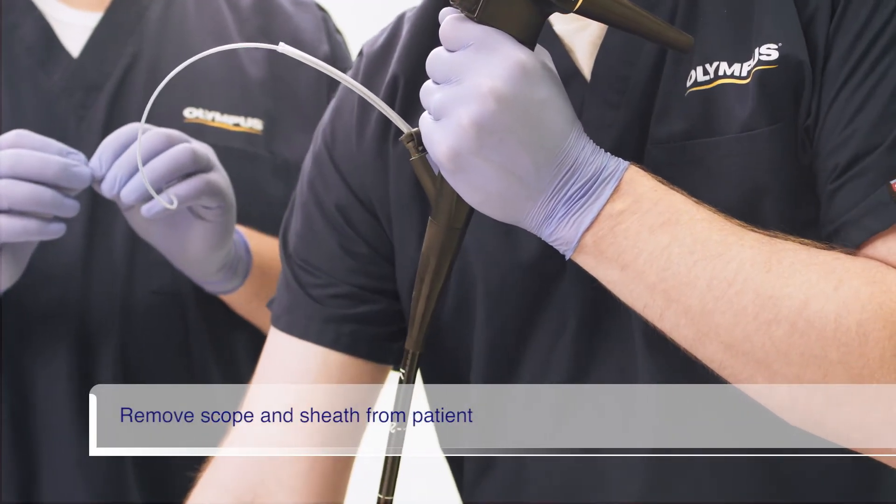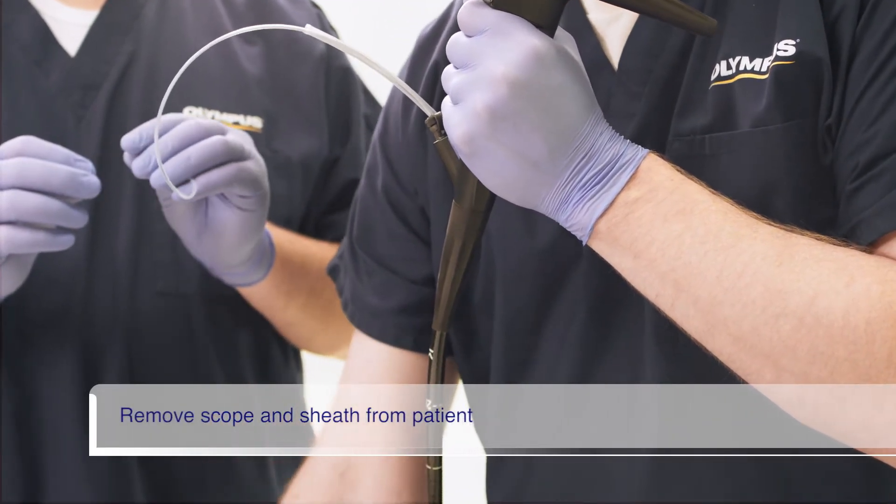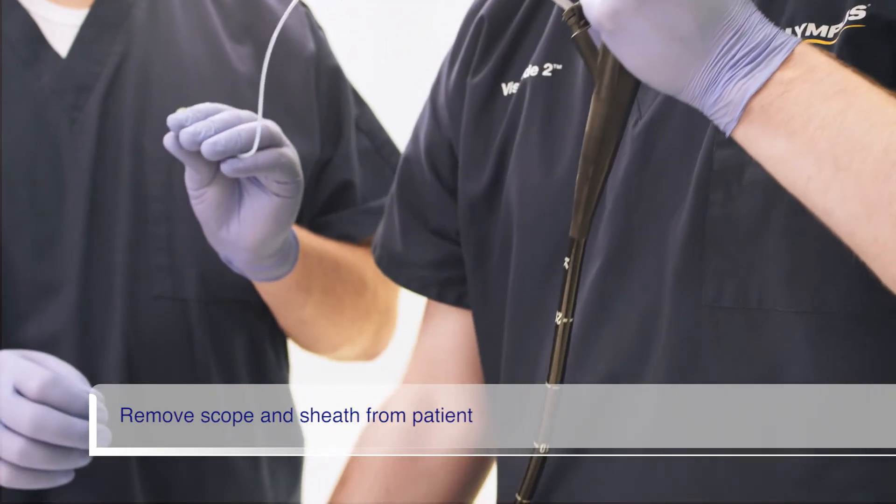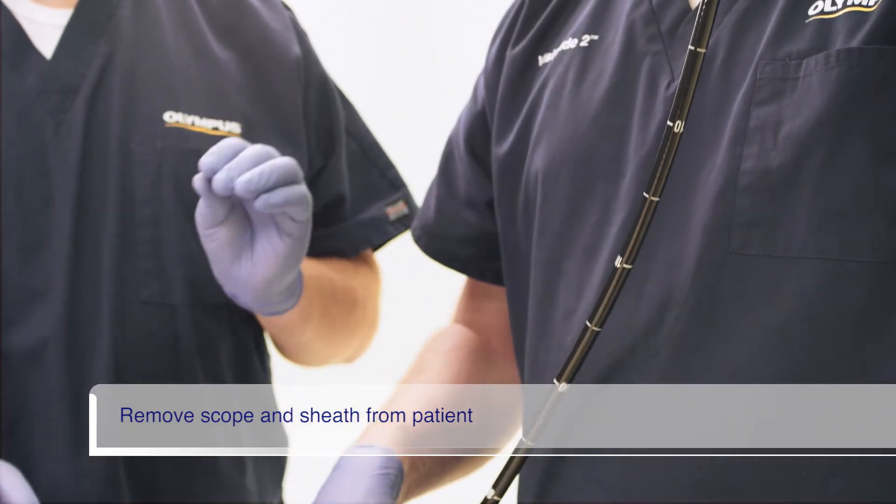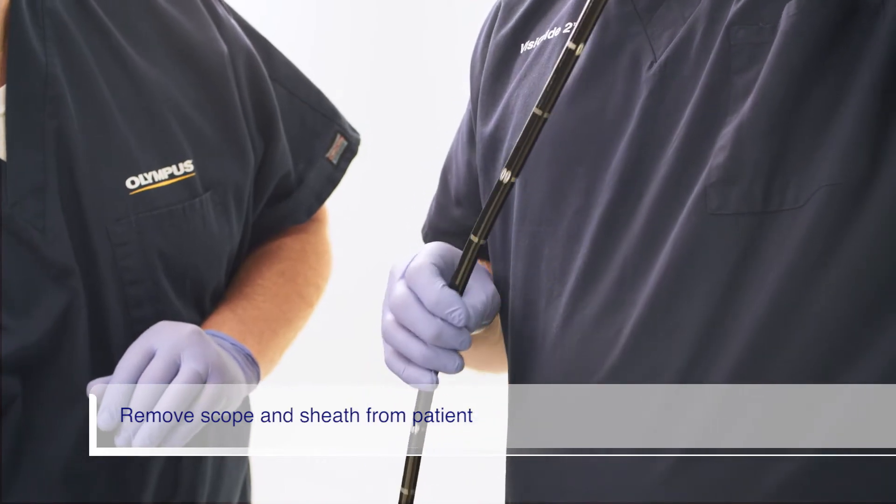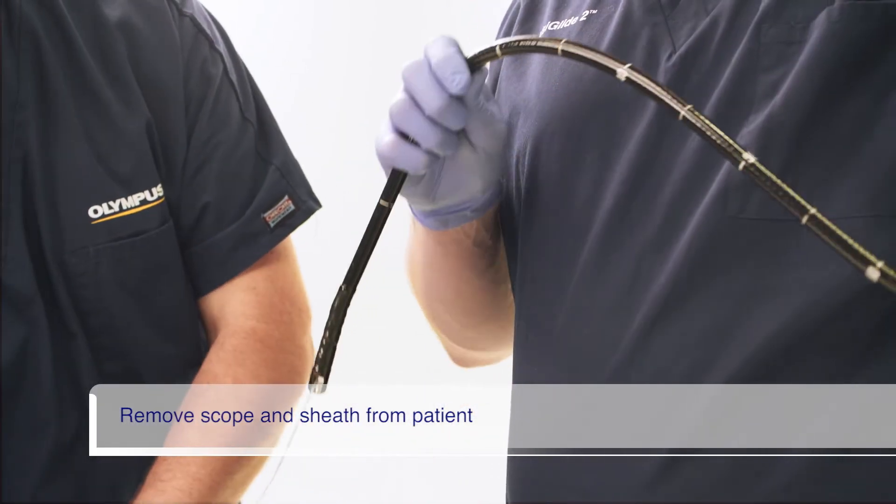Now, the sheath and scope need to be simultaneously removed from the patient. Do not remove the sheath prior to removing the scope, as this may cause damage to the scope working channel.